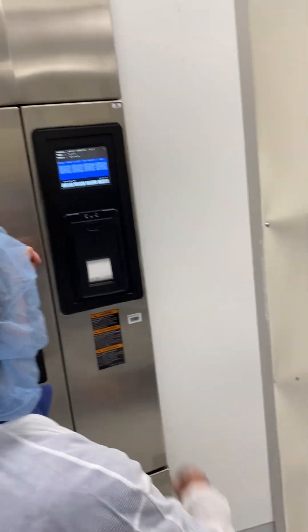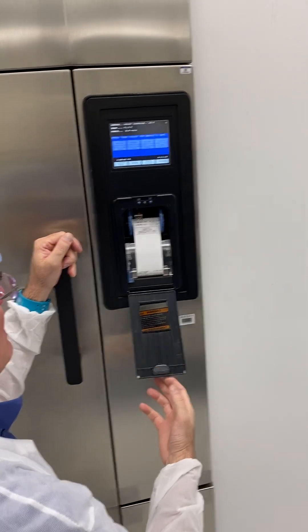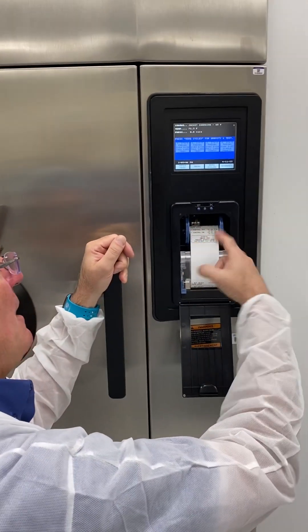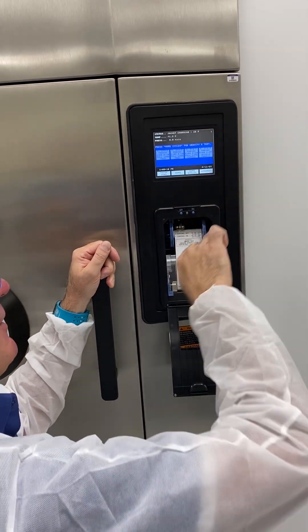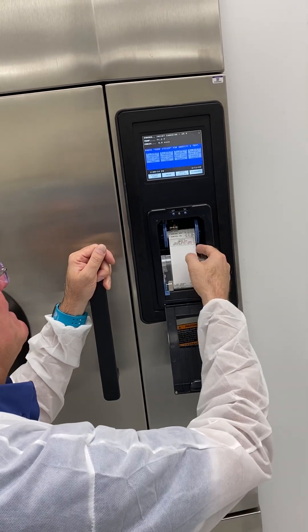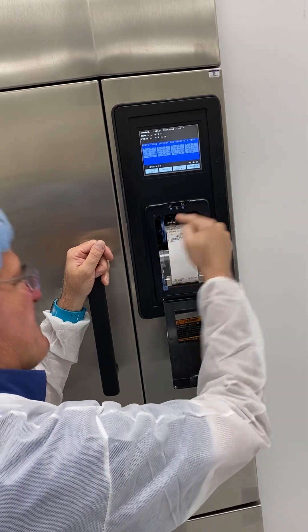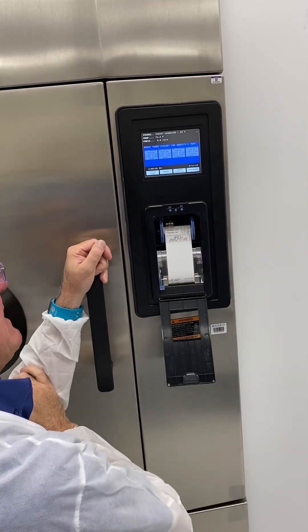I'm going to go ahead and open the door. When the machine is done it creates the tape, and most people tear it off and take the tape with them. I don't see too many people letting the tape collect on the take-up roll — I don't see that too often.